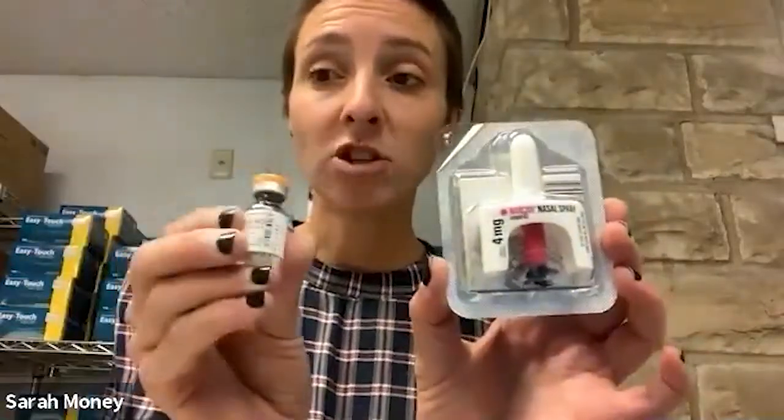Naloxone, or Narcan, is the brand name for naloxone. Just means that it's in the nasal atomizer. Looks just like this. So I'm going to go over how to administer the nasal form and the injectable form. I'll be using the term naloxone to refer to both, but if I'm talking specifically about the nasal atomizer, I'll try to say Narcan. Hopefully it won't get too confusing.